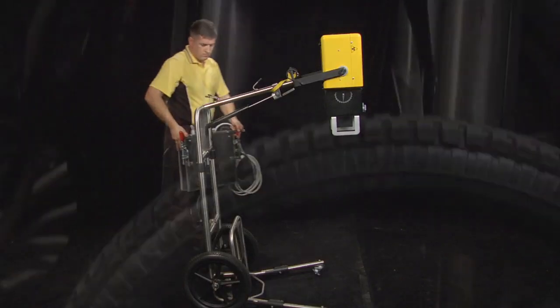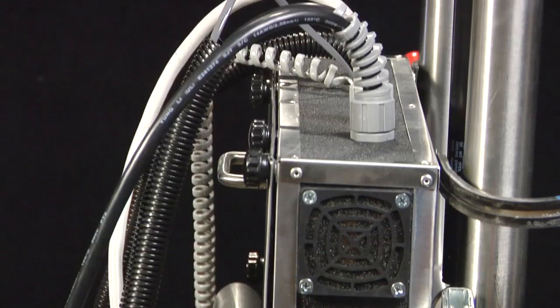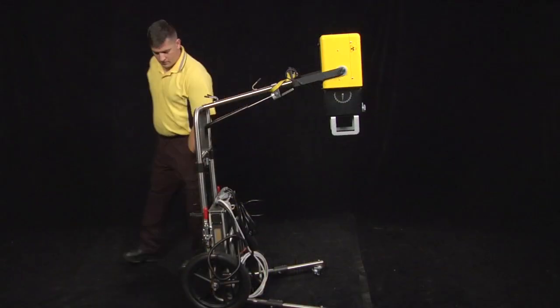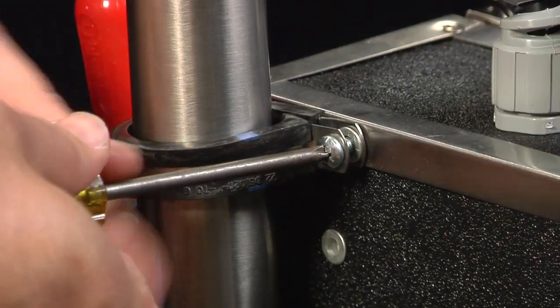Set the lower electrical control box in the cassette storage rack on the Min X-ray HF120 XGS stand. Secure the two mounting clamps around the stand frame with the Phillips head screw provided.